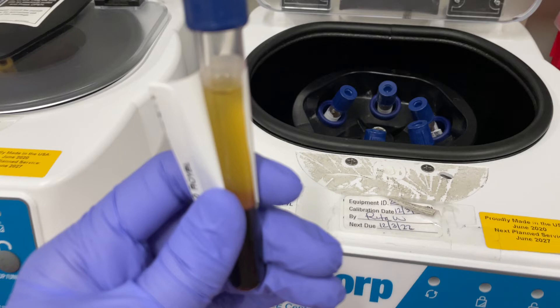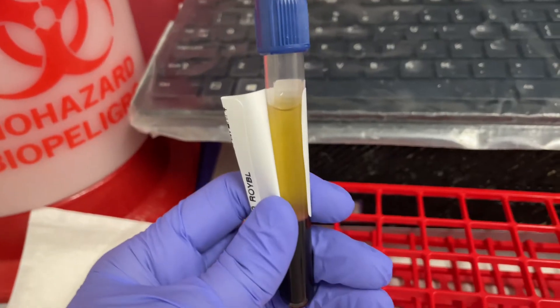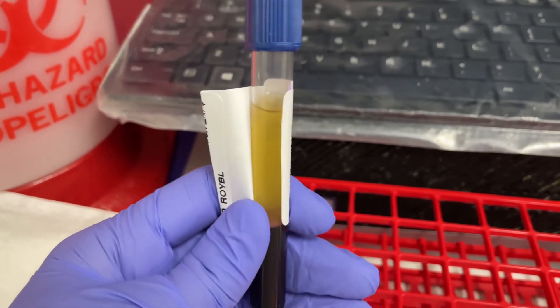I drew a patient and the instructions told me to spin these tubes. This is a royal blue tube. As you know, there is no serum separator to separate those red blood cells, so you have to be very careful how you hold these tubes. If I tilted it the wrong way, it could mess up the whole specimen — since there's no separator, you have to be careful when you move it.